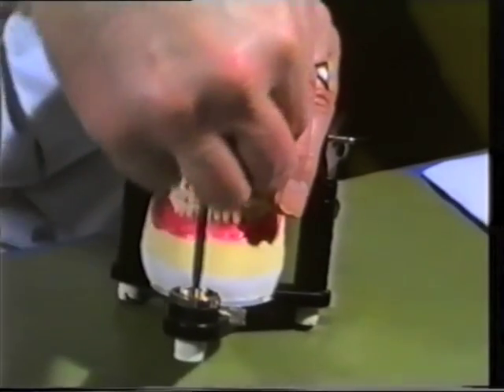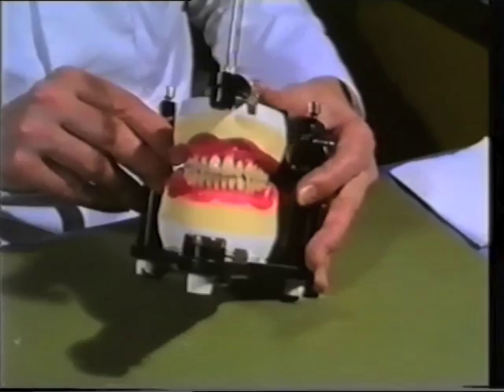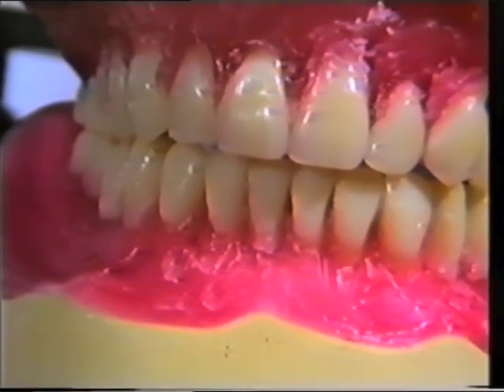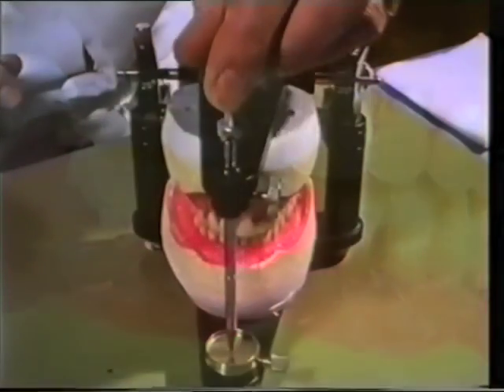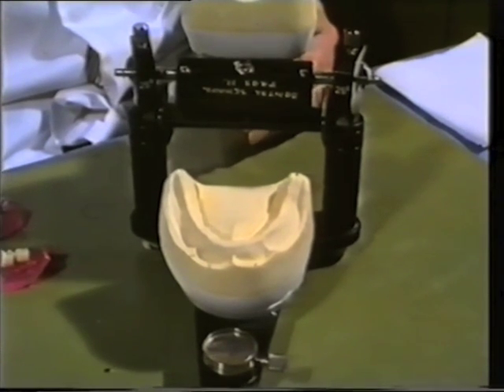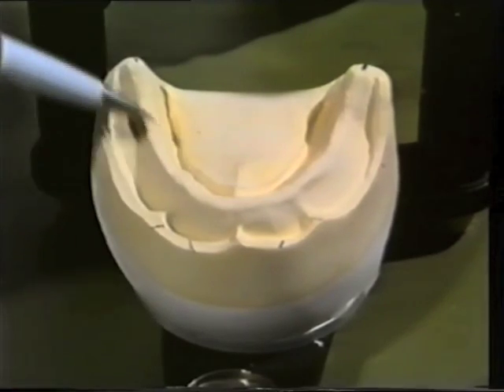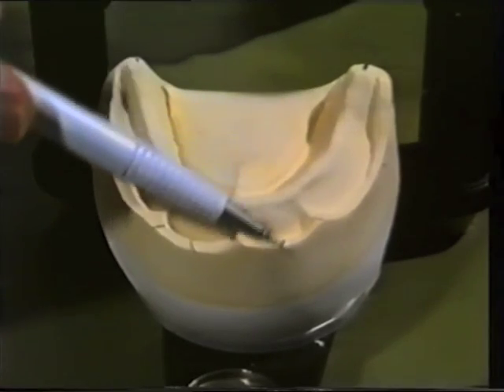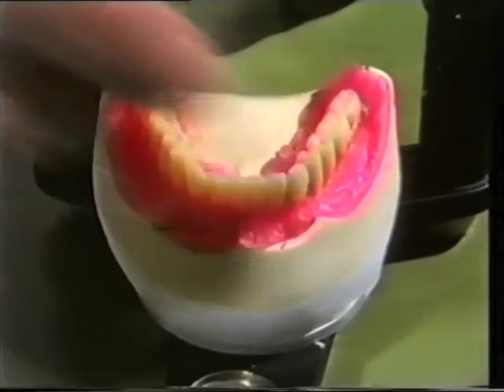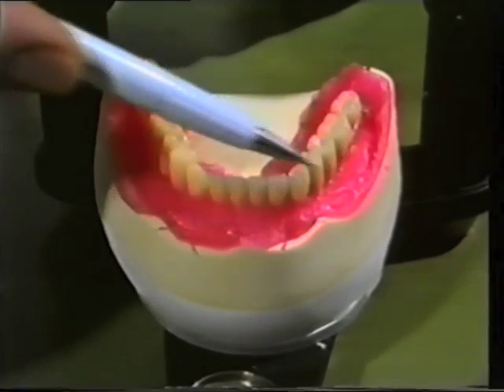The incisal guidance post is now removed to facilitate a closer inspection of the anterior tooth position. To ensure the stability and function of a complete set of dentures, it is essential that the posterior teeth be positioned in relation to the midline of the lower residual ridge. Here we see the midline indicated with the aid of pencil marks drawn on the land area of the lower cast, so as to facilitate comparison with the residual ridge when the denture is in situ. The posterior teeth are positioned so that the longitudinal fossae of the teeth are set up coincident with the midline, and the anterior teeth are also set up in relation to the midline of the ridge.